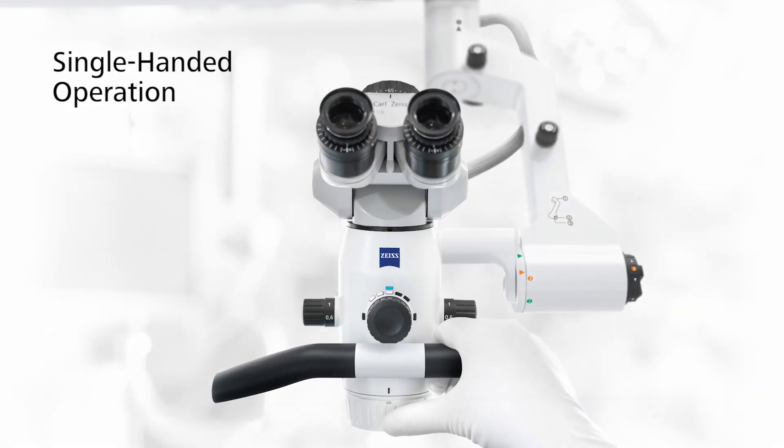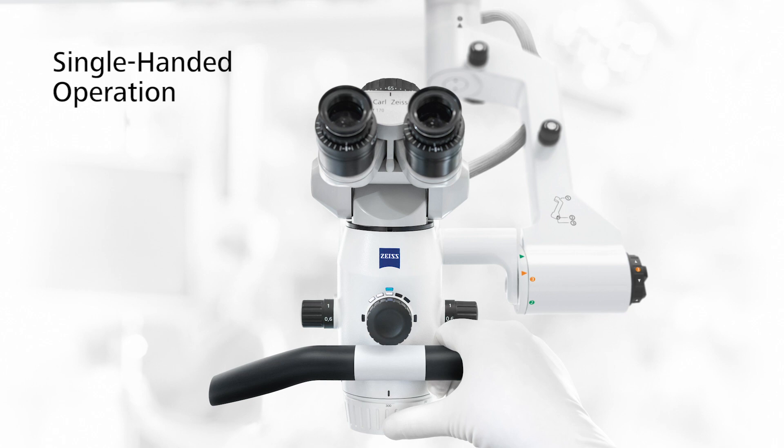It's quite intuitive to find the right pressure point and where it needs to be turned or pressed. It is easily reached with a normal sized thumb if you are holding or handling the microscope.